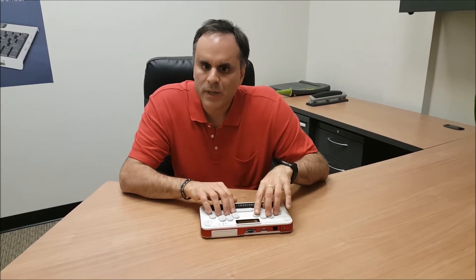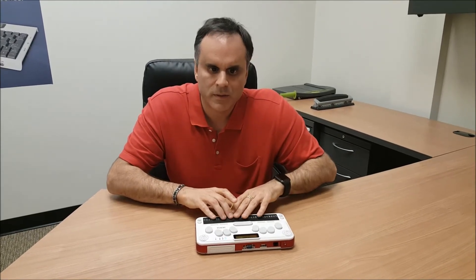To start recording a macro, the command is Function Key 2 with the letter R on your BrailleSense U2. It says 'start macro mode.' I'm going to start with F1 to give myself a consistent starting point at the file manager at the top of the main menu. Then I'll type W for word processor, which puts us at the top of a blank document.